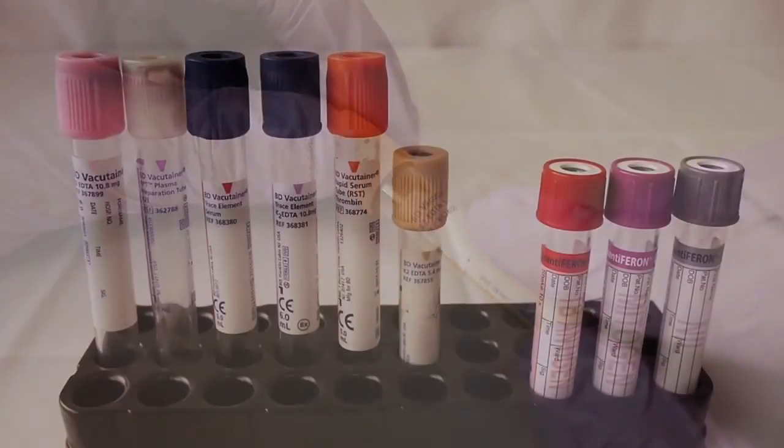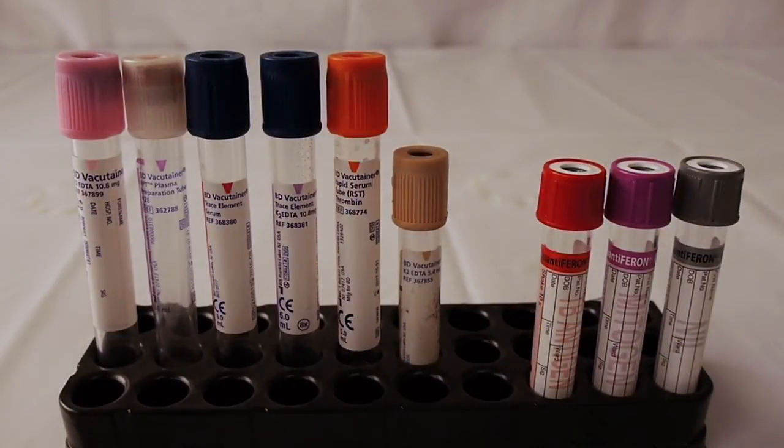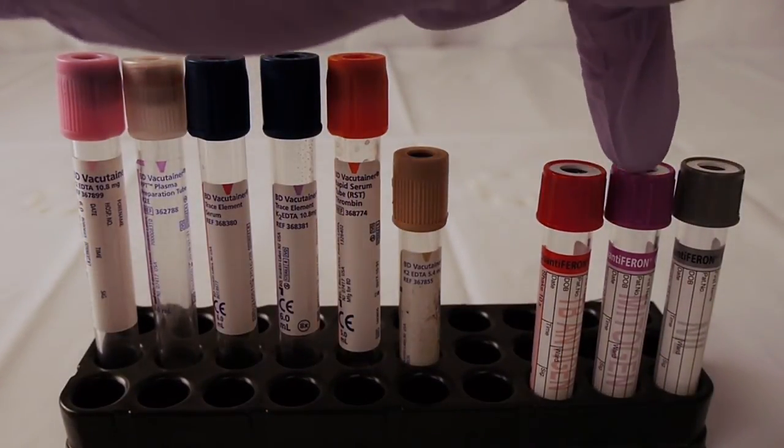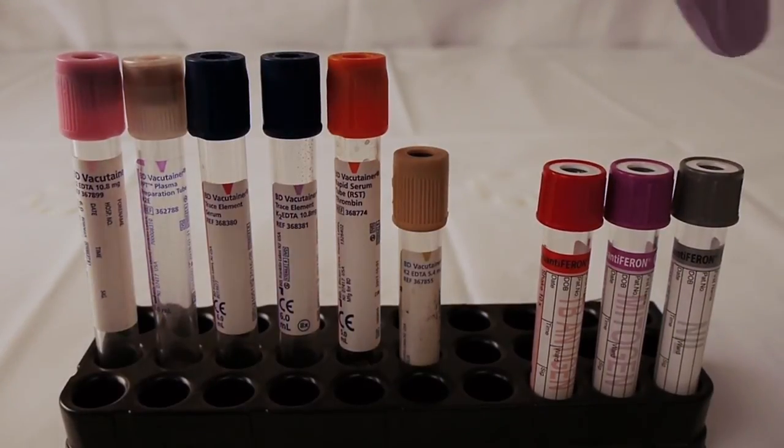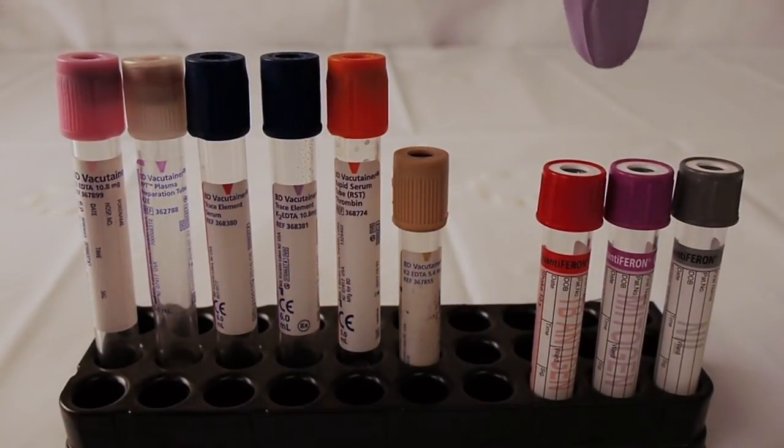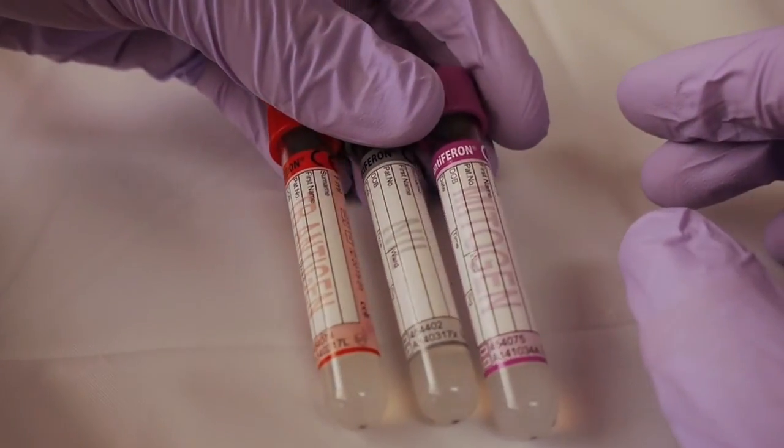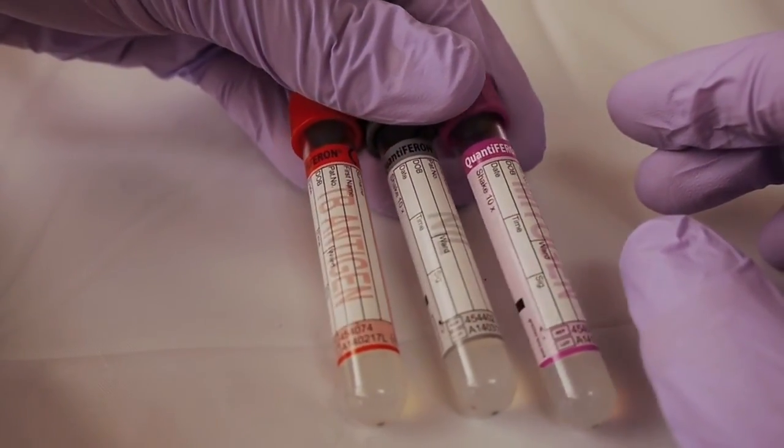Next we have the quantiferon tubes. This is a set of tubes, always drawn in a set. They also have a little gel barrier in the bottom. They are used for TB testing.